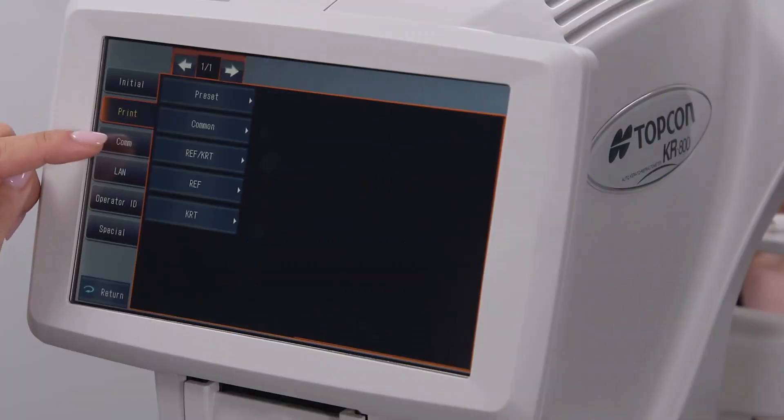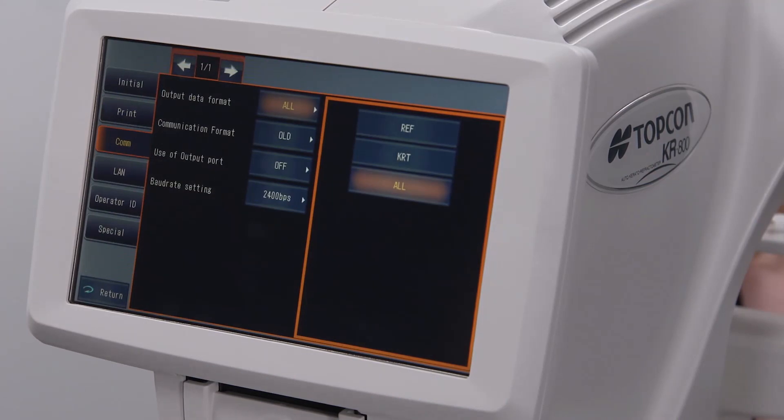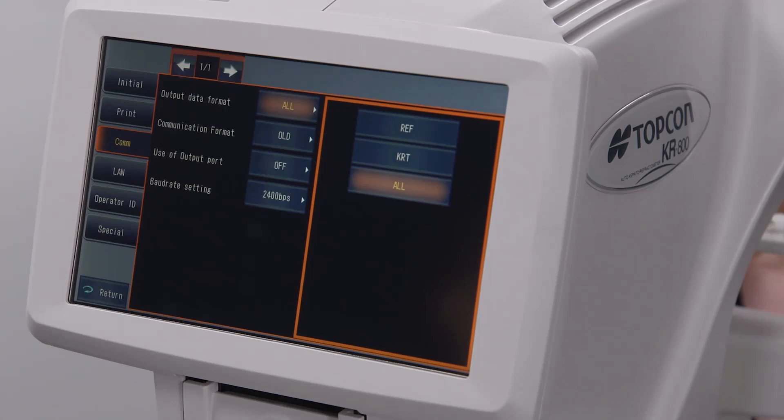The communication tab contains options involving exporting data through a round 9-pin cable. Depending on the device the KR800 is exporting to, these settings will vary. Please contact TopCon tech support if this type of export is needed.